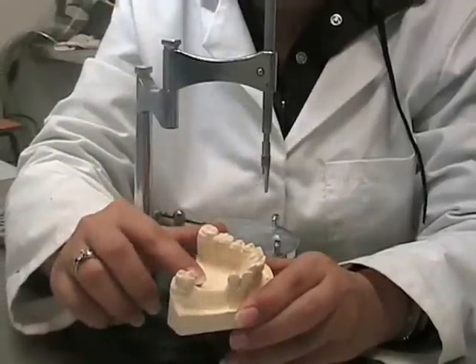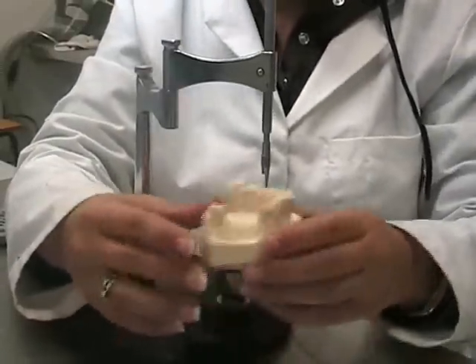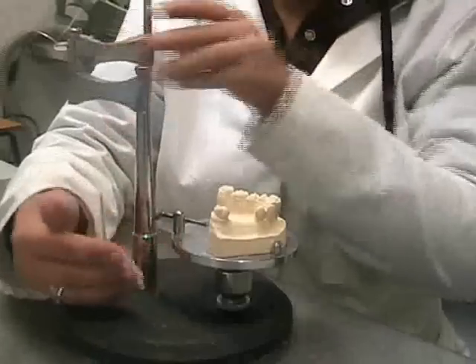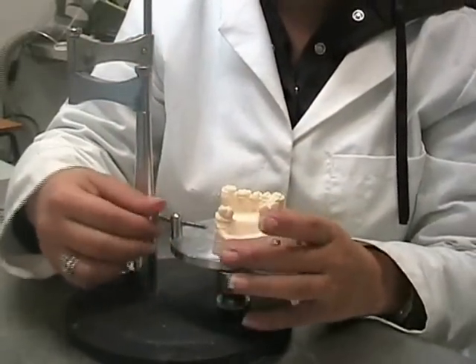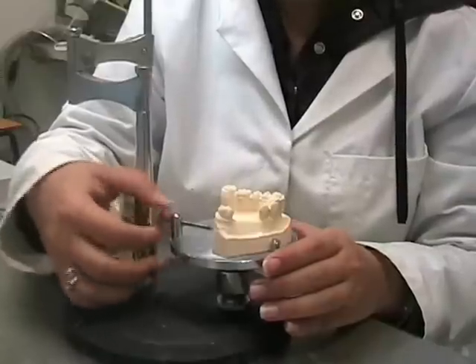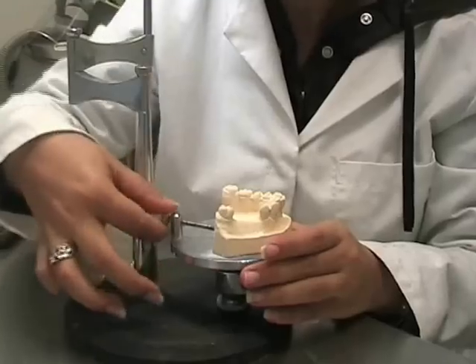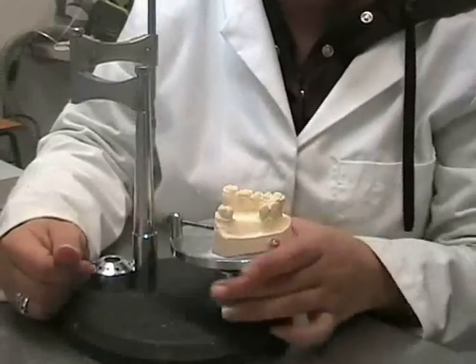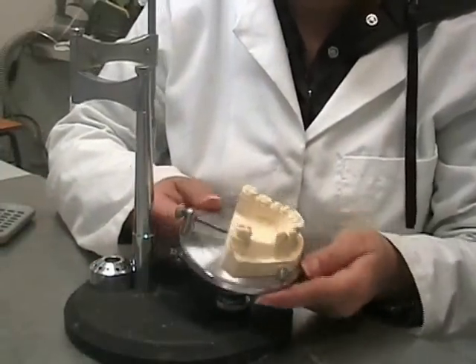It is in this region that we analyse and assess the cast. In order to do so, we place the cast onto the cast table and lock into position using the screw in the back. Once locked into position, we make sure the cast table is unlocked and able to move freely.